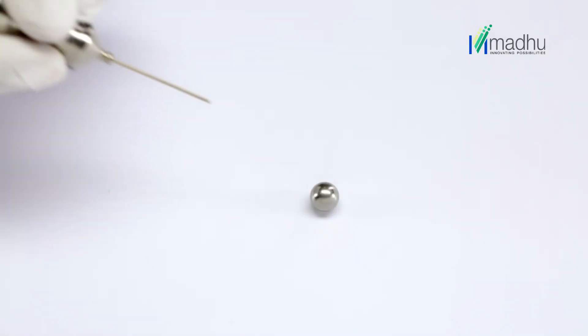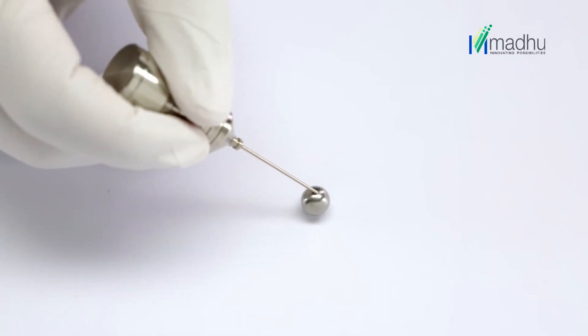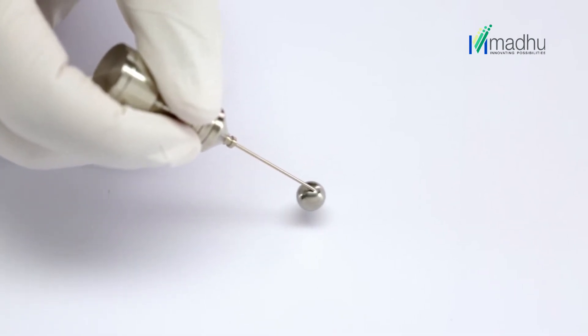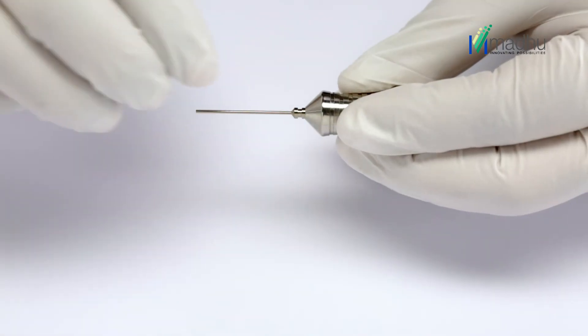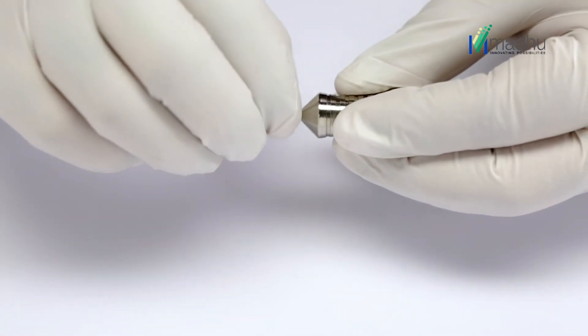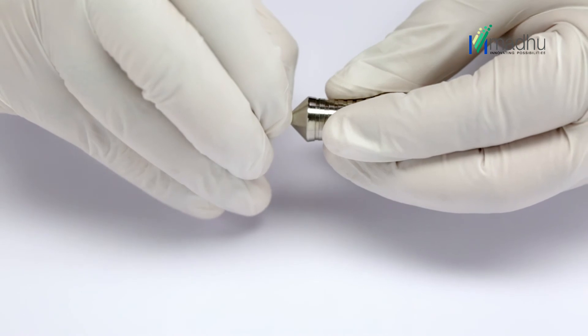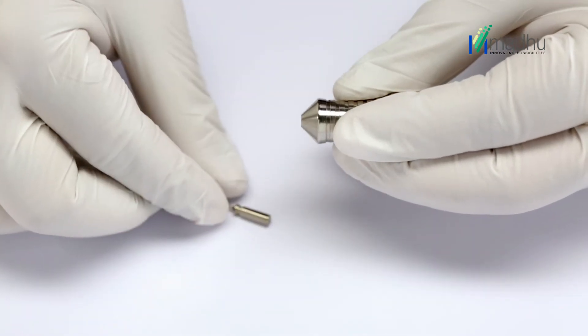Once the magnetic bond is confirmed, the intraocular magnet is ready to be used. To remove the magnet tip, hold the intraocular magnet handle in one hand and use two fingers of the other hand to pull out the tip by gripping at the notch in the tip base.